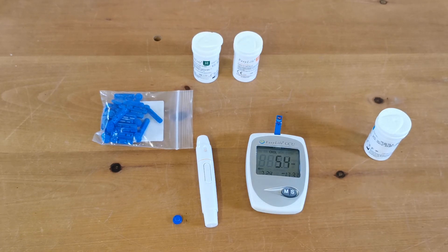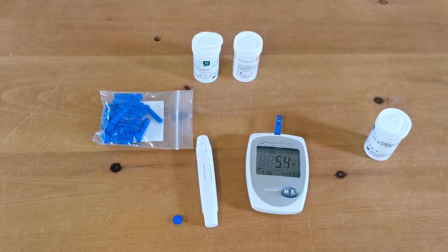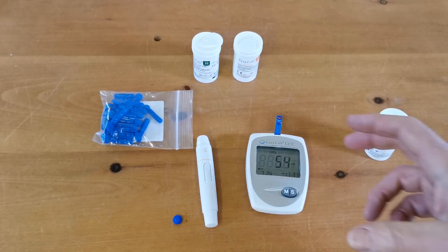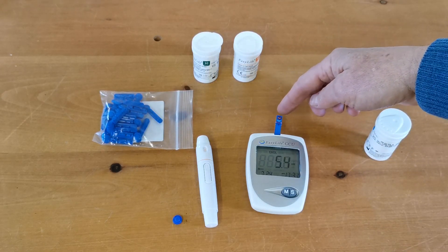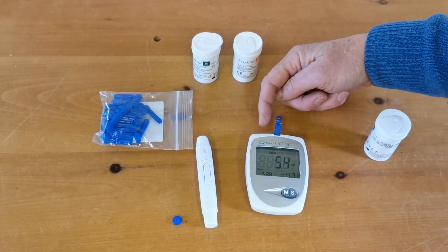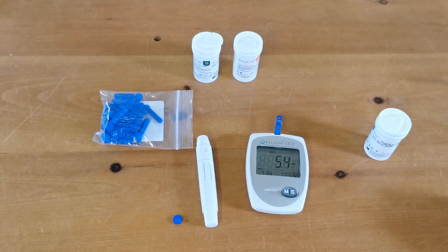The procedure for running a glucose test or uric acid test is exactly the same — there's no mystery or special procedure for those individual tests. The most difficult test to get great results on is cholesterol, because you need a good blood volume and good technique. Also know where to put the blood sample: the port is clearly shown on the white strip that runs across — put it in at the right end and it will run and trigger every time.